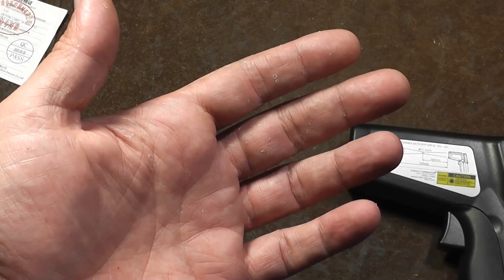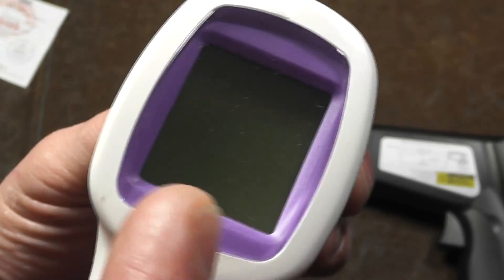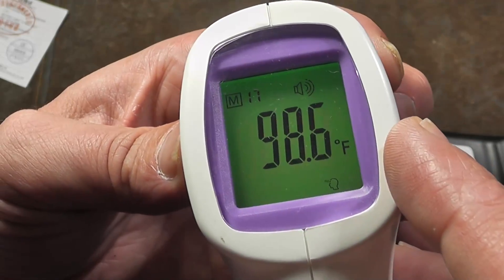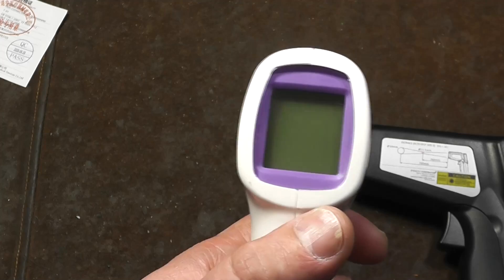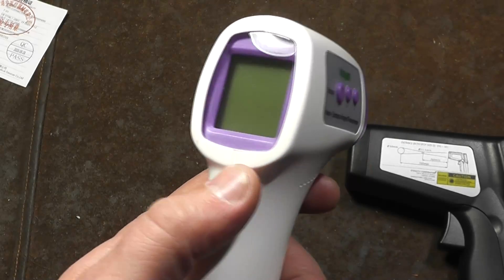Using my hand versus using my forehead, it actually reads 98.6. And there's our memory. One of these medical ones has like 30 odd memory settings. But this is designed entirely around measuring between 90 and 110 — really just human body temperature. It is calibrated and has a special cone and sensor tuned just for human skin.